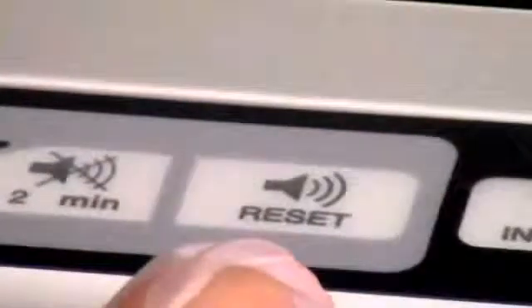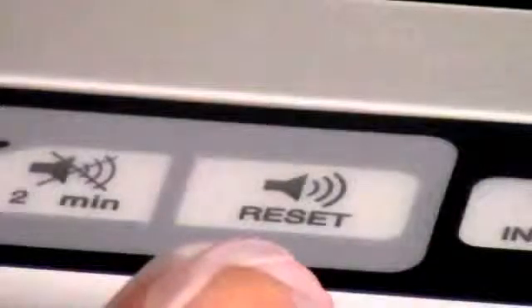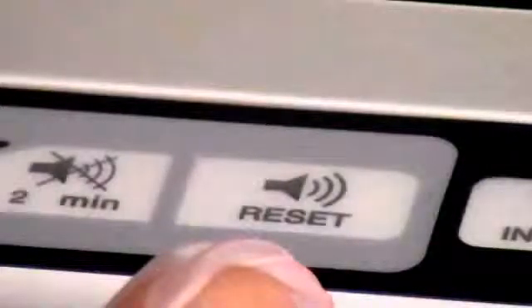The alarm reset key clears active alarms or resets high urgency alarms and cancels an active alarm silence.